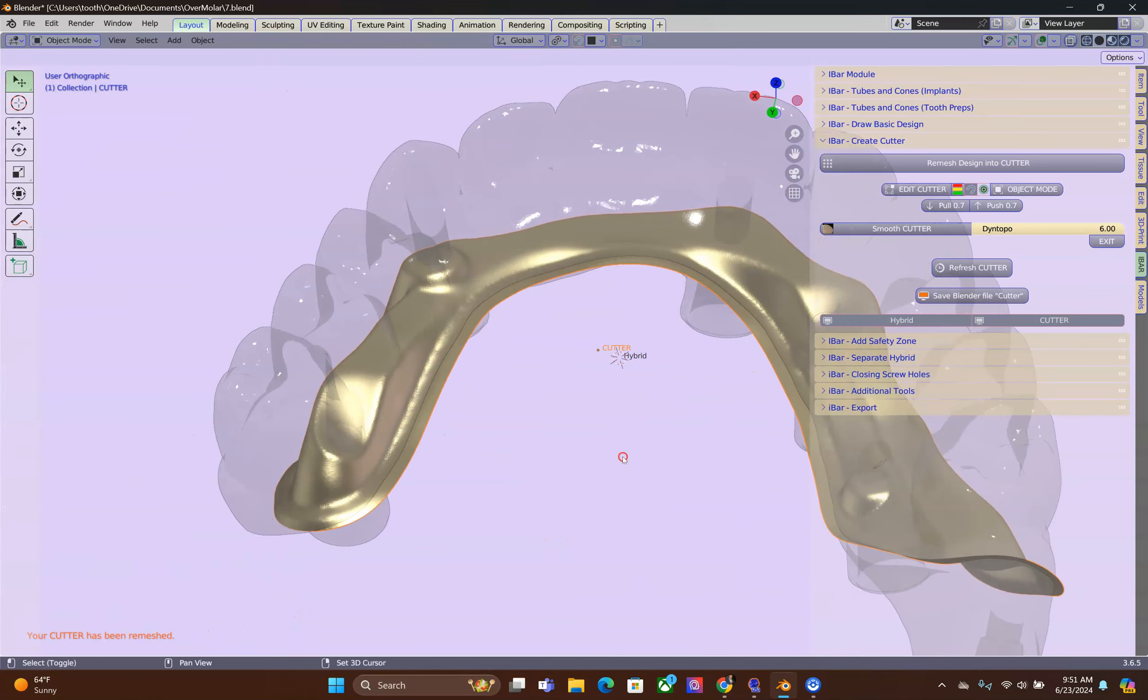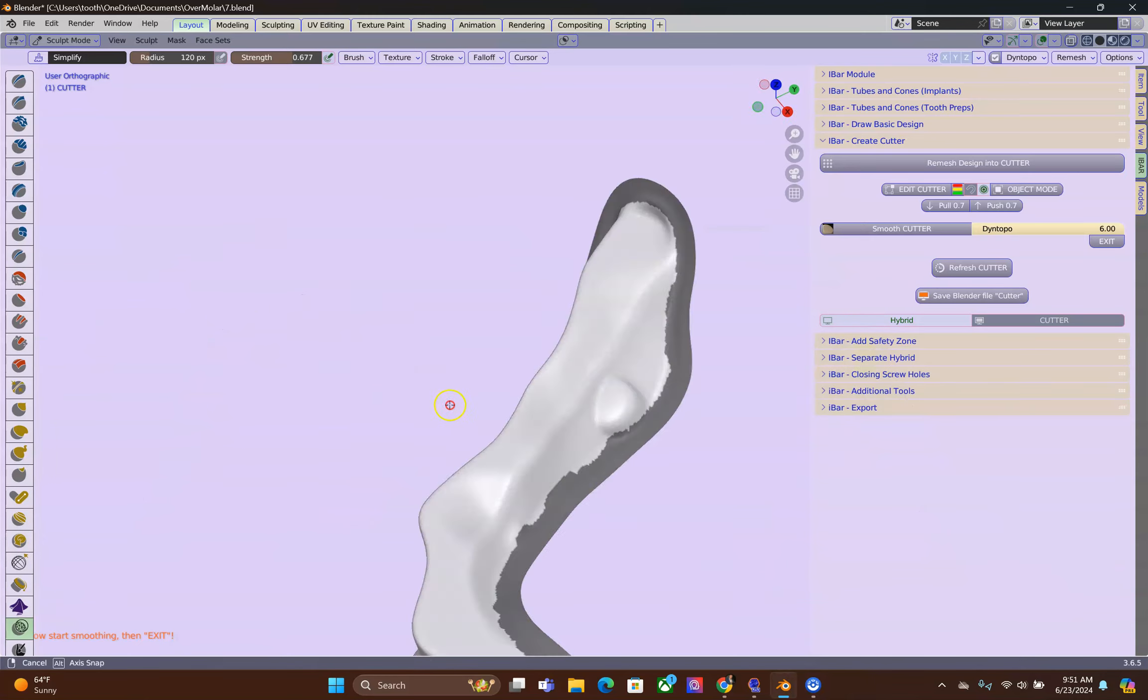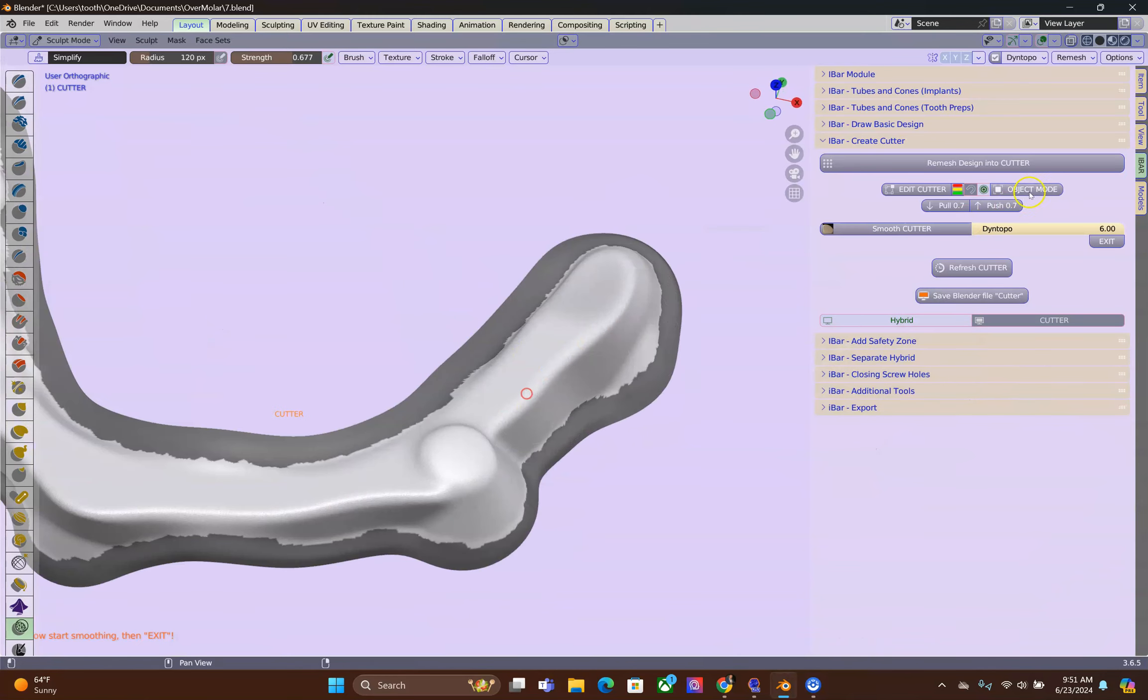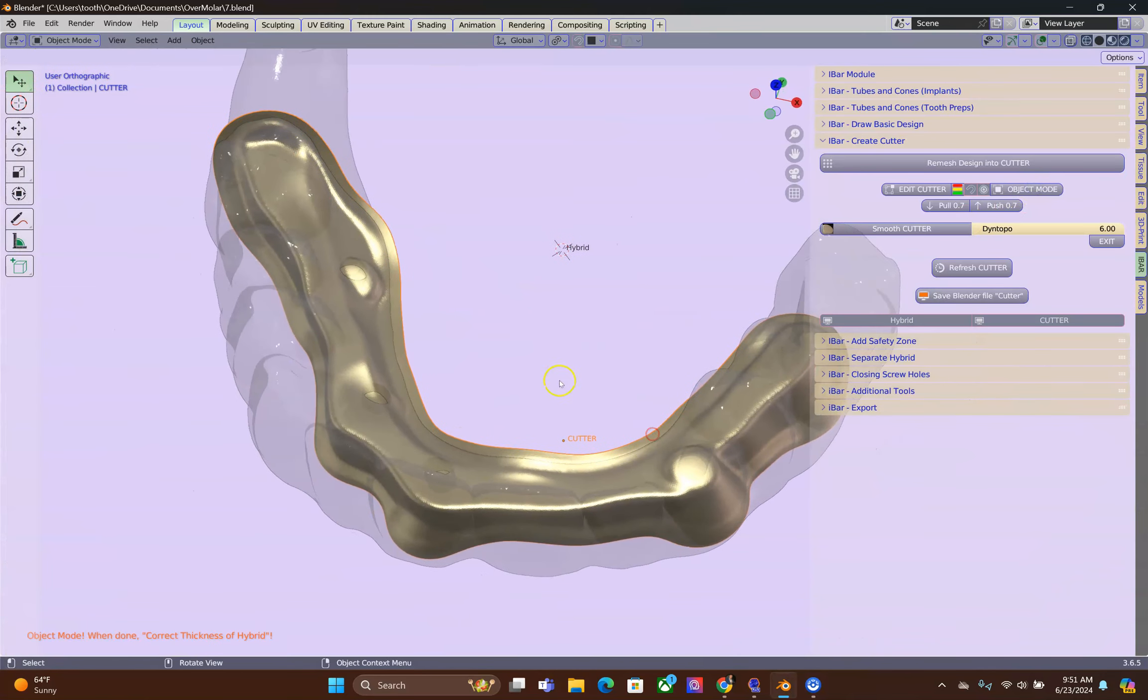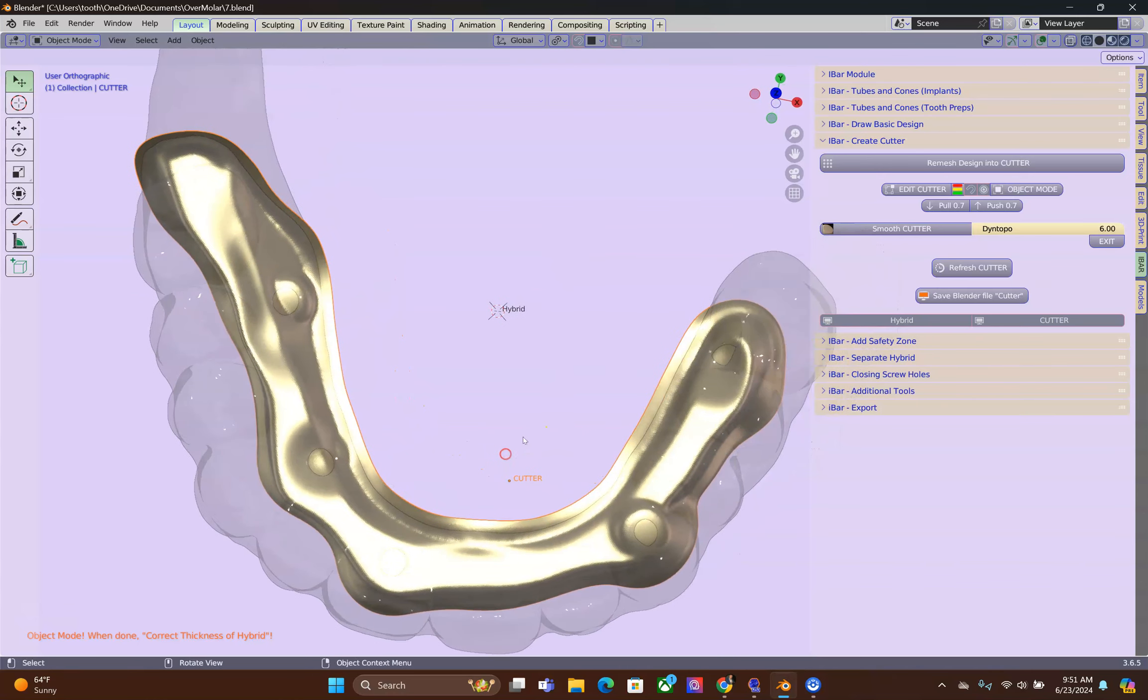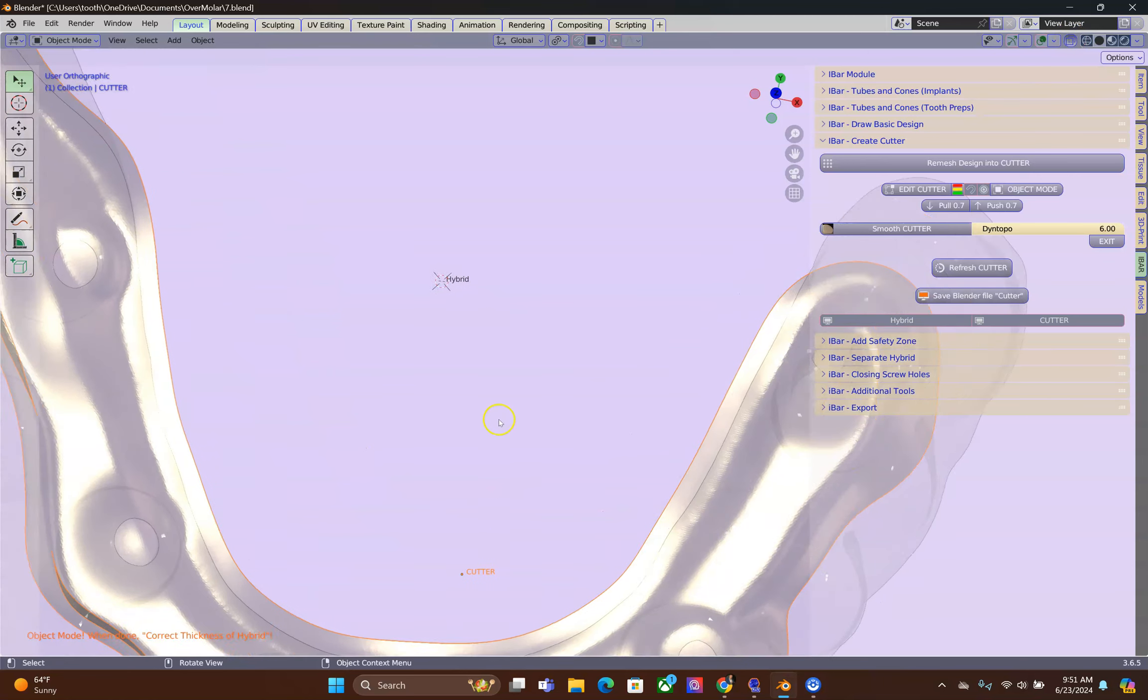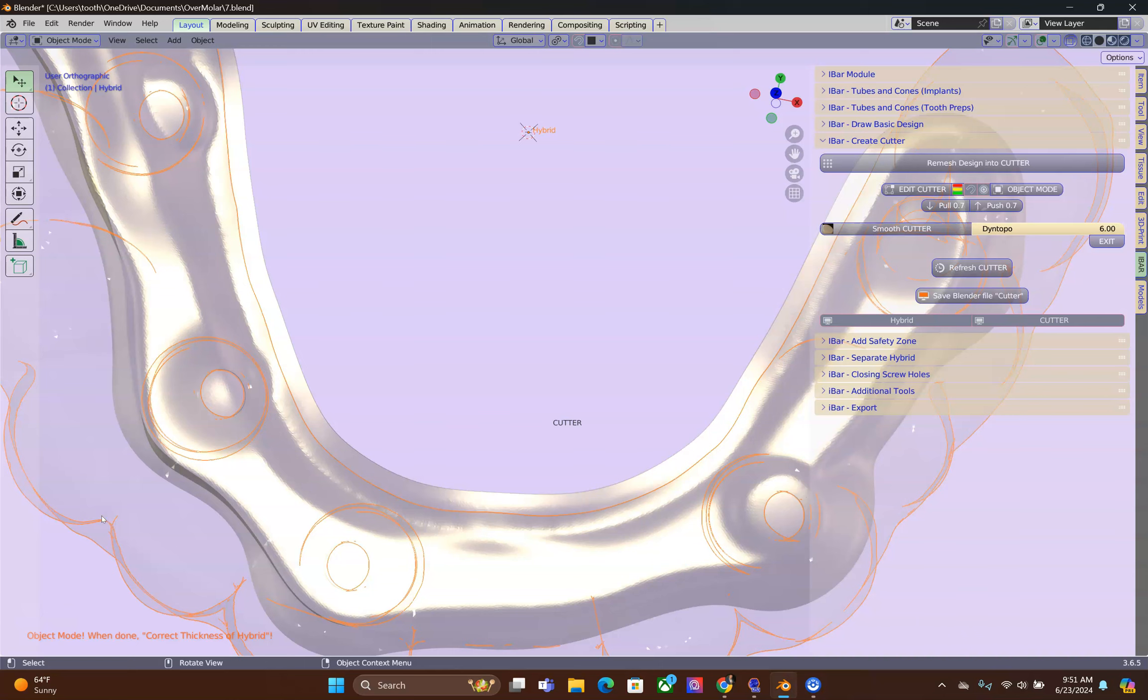Finally, I'm going to smooth down my cutting tool. Click on Smooth Cutter. Now, it is essential to see that there are no undercuts. In transparent mode, when we rotate the scene, we will be able to pick up these undercuts.